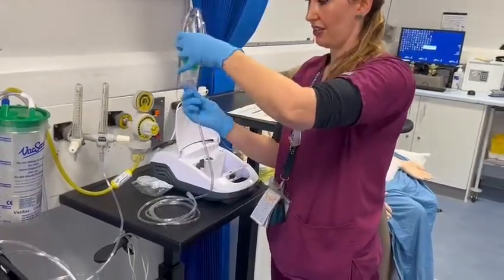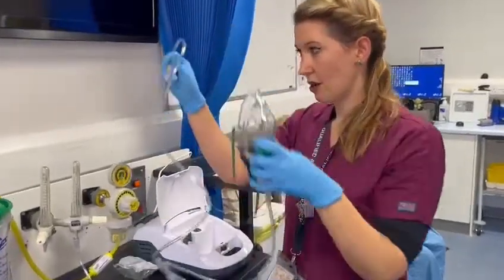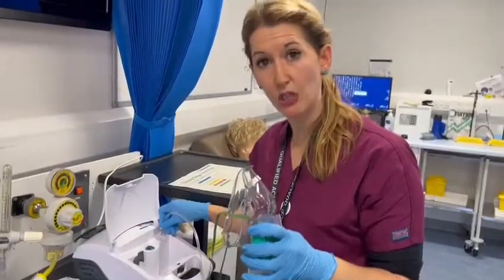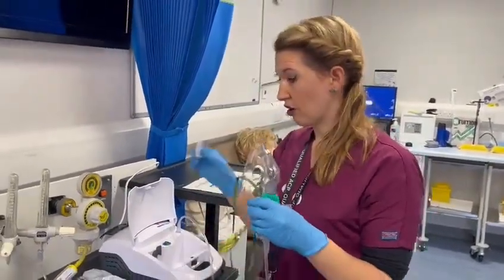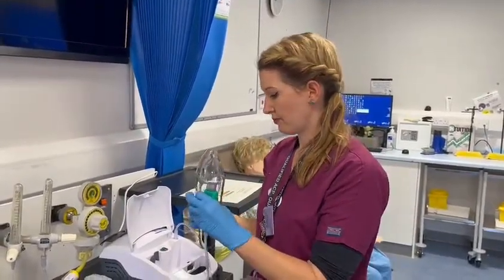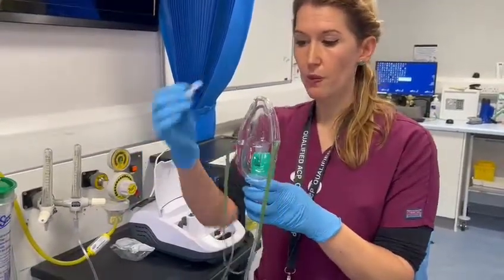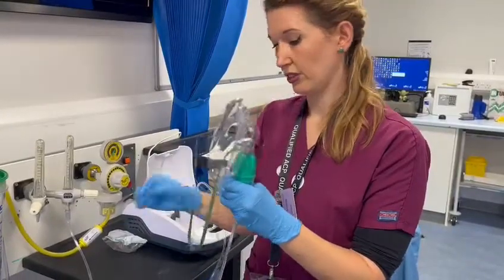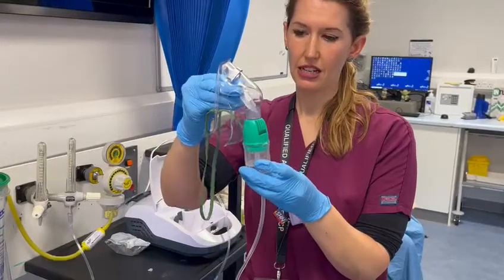I'm now going to connect the end of the oxygen tubing to the end of the nebuliser chamber, then use the port to connect it to the port on the nebuliser machine. I've then got my nebuliser solution — I'm going to open it and pour it down into the middle of the device.